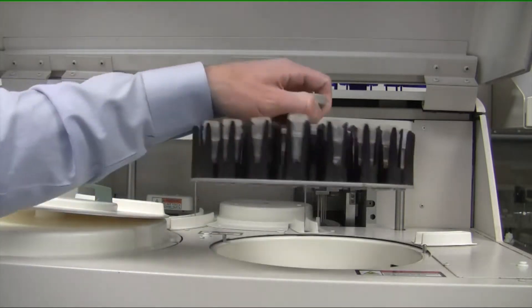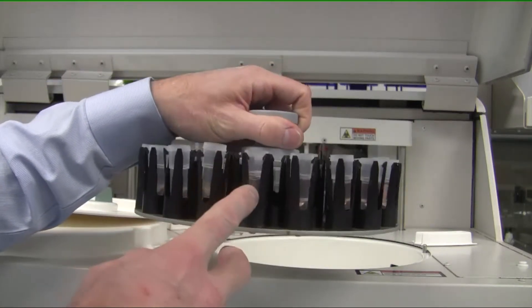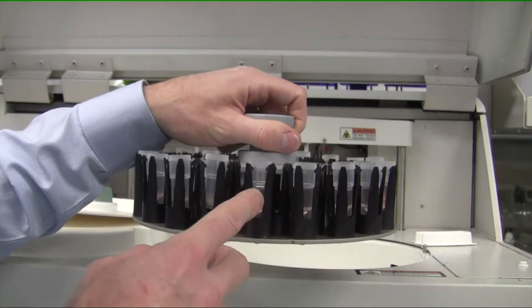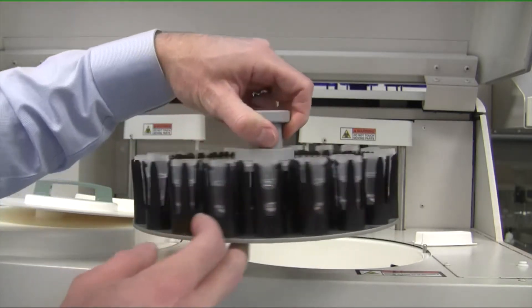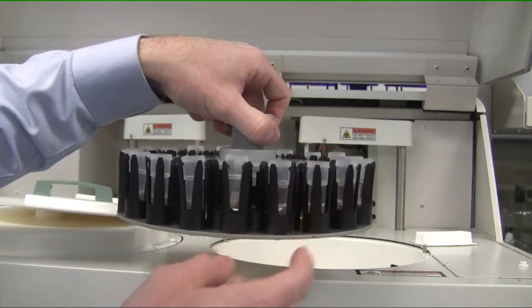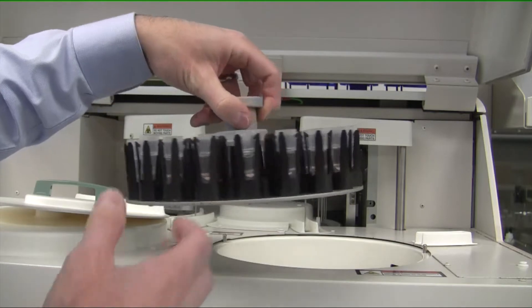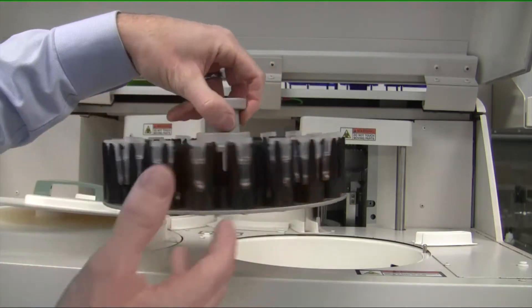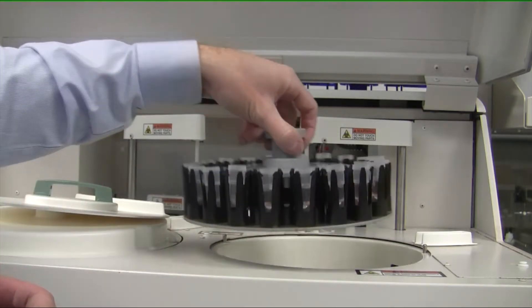Over here are the samples. You put your samples into standard sample cups. Various instruments have various sizes, mostly depending on the throughput. They also hold different numbers of samples.